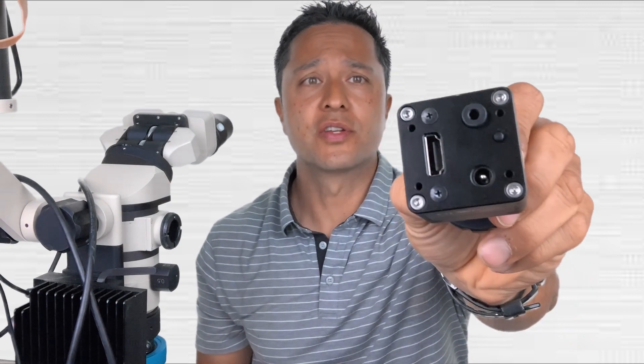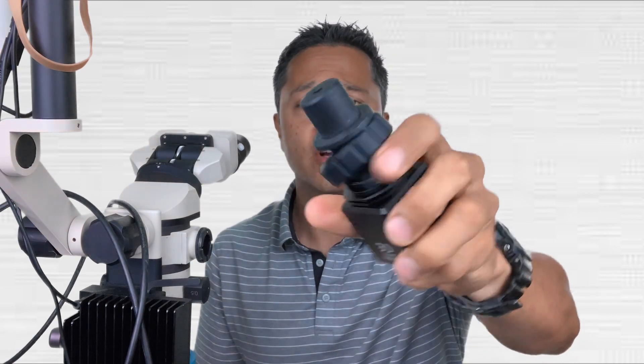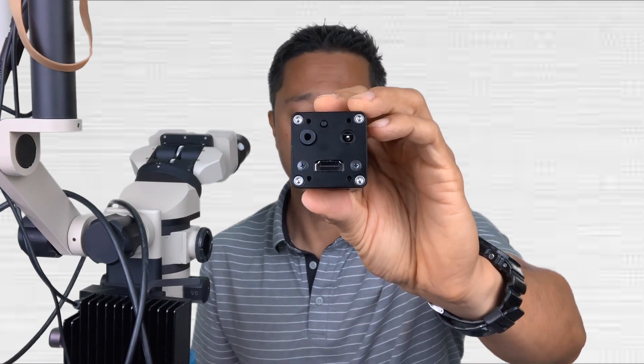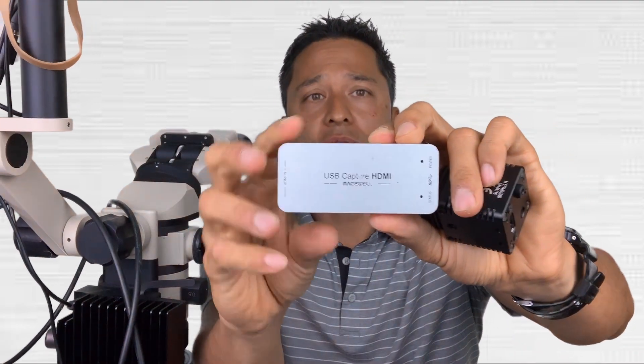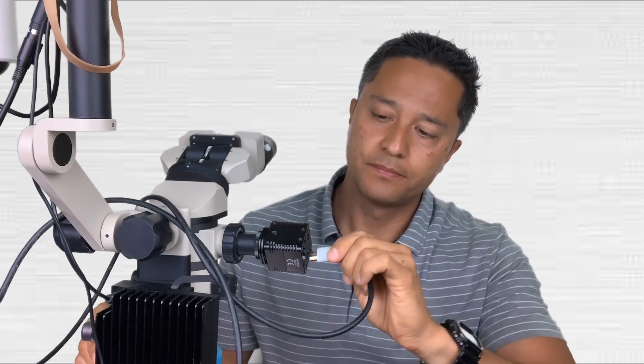A lot of my video now is captured using this HD camera from Global. It is bomb-proof. What I love about Global is that it's a very simplified, modular system — I just screw the camera in and out and carry it in a little Tupperware container. All I need is an HD output, so for that I use my Magewell USB capture device. These two things are critical — they go together. I plug in my HDMI cable and my power source, and we're good.